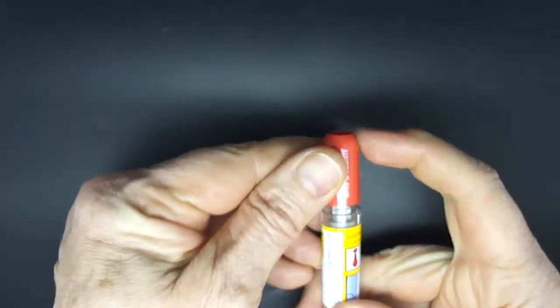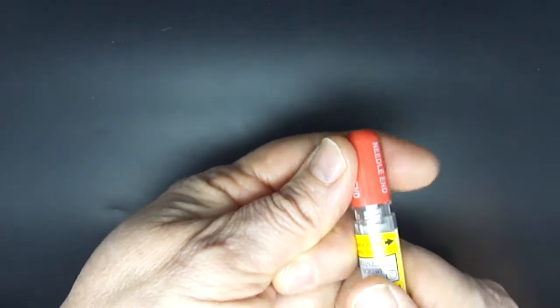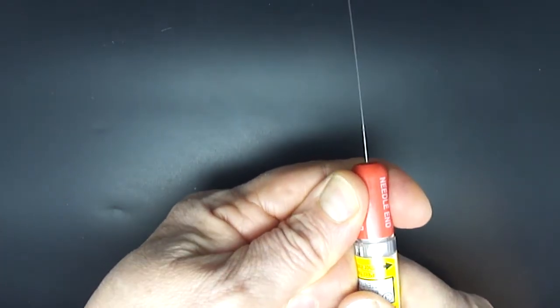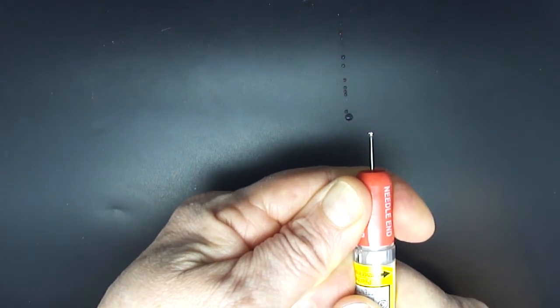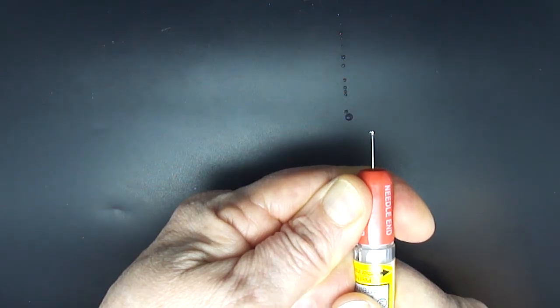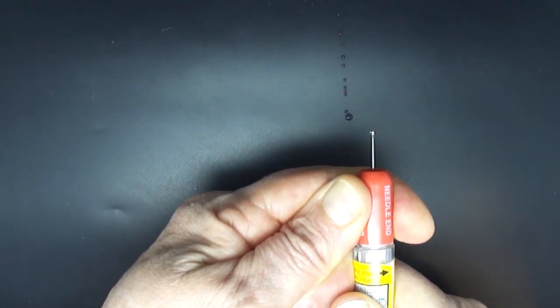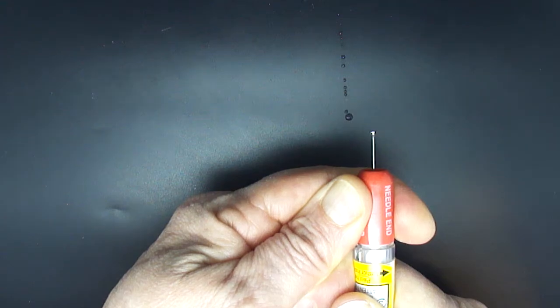And then you just hold it against your thigh, lateral thigh, and you fire. And hold it for 10 seconds: 1, 2, 3, 4, 5, 6, 7, 8, 9, 10.